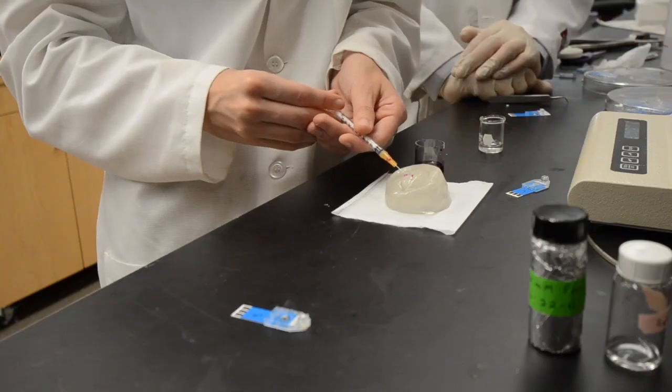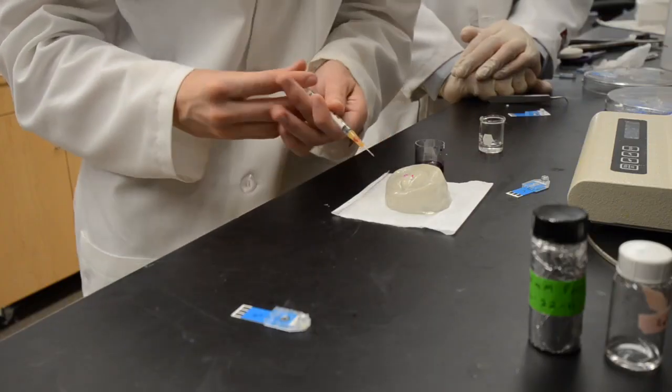When it comes to capturing tear fluid and testing it, there's a lot of little steps that have to go right in order to reach that goal.